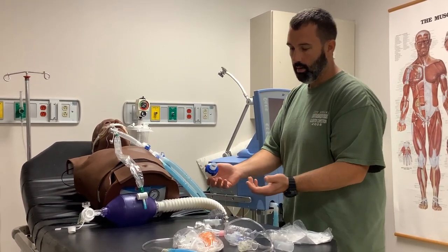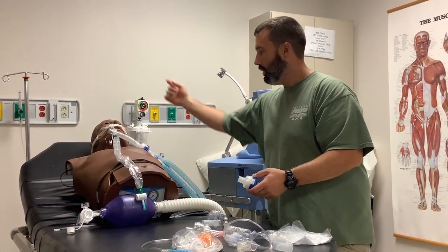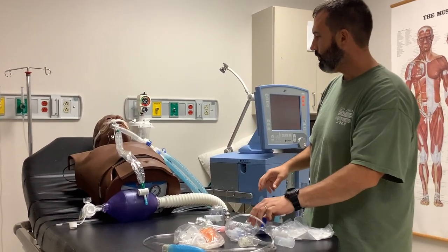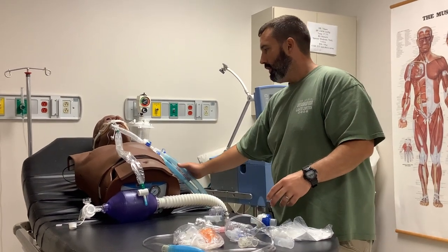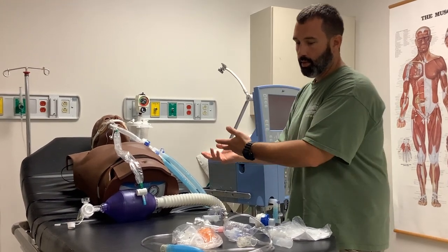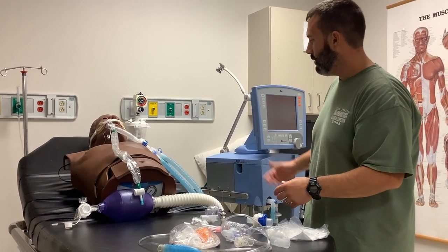The majority of HMEs out there are just straight-up HME, so you've got to take it out or make sure that you put stuff on this side. But if you're putting it on this side, that's going to increase your dead space. And if you're putting it back here and you don't have one of these kinds of HMEs, you're breaking the circuit every time you put something in and out of it, which is going to predispose your patient to more infection risk.